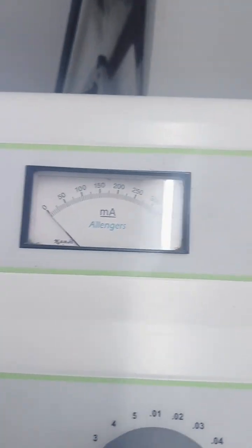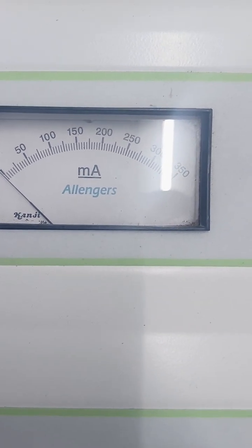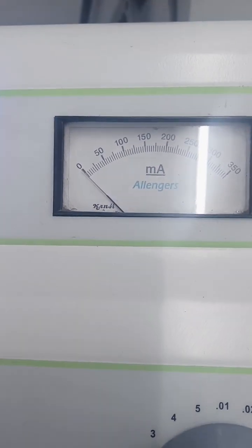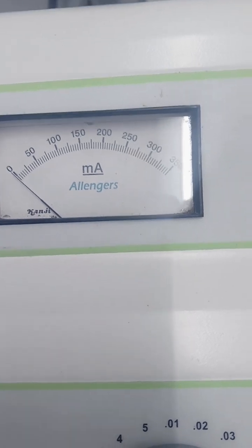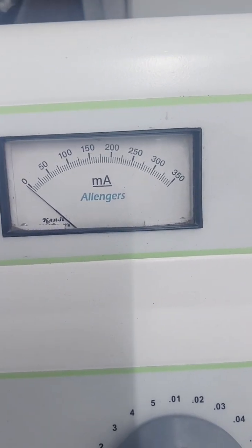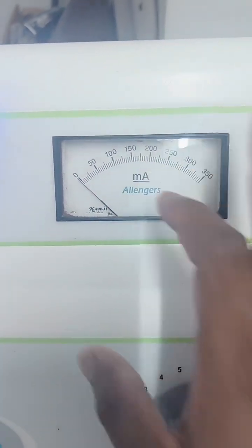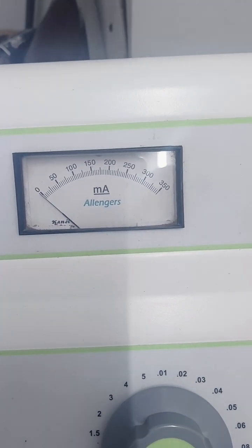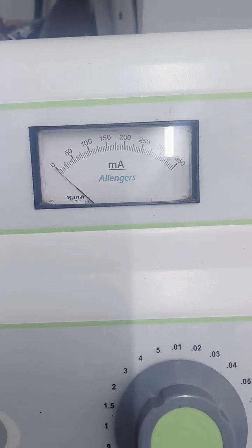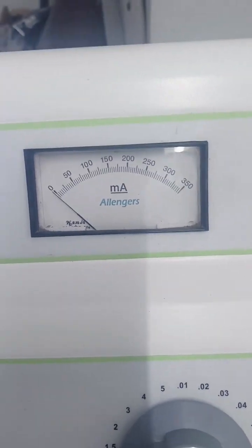mA is milliampere. If anyone asks about the capability of your machine, they ask like: 350, 300, 100, 80, 50 mA machines. Most interviewers ask what mA you are working at. You can tell them 350, 300, 250, 100, 500, or 800. General and digital radiography use 100 mA, and CR machines use 350 to 500 mA.